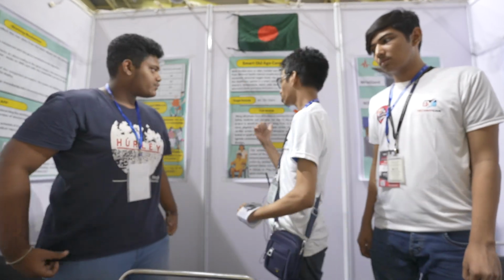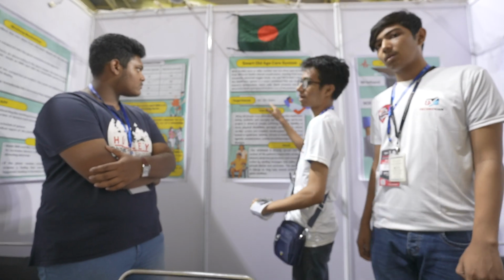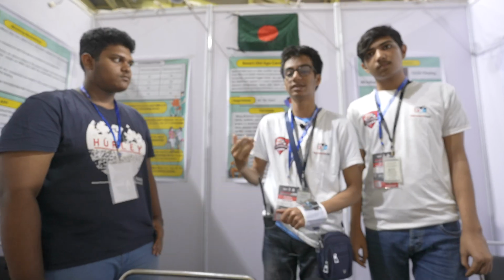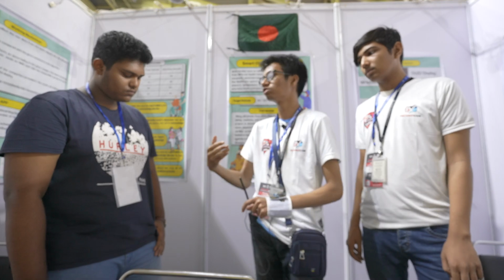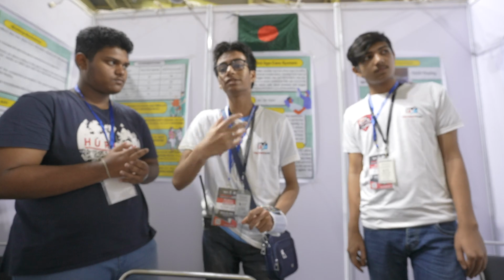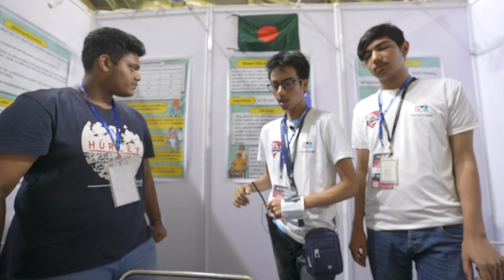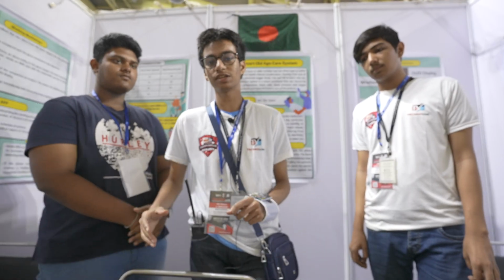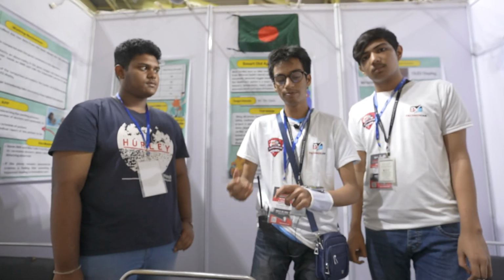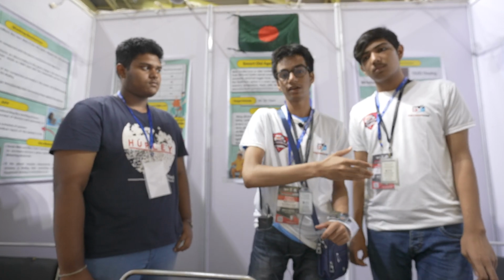Our project is basically targeted towards patients in the range of 60 to 70 plus years, and also people who are suffering from health-related complications. For example, those suffering from paralysis, the inability to move, or who are handicapped or crippled, and people who have certain health complications such as heart attack, cardiac arrest, etc. Our project measures parameters such as the temperature, the BPM, and the pH of the sweat of the patients to alert the caretakers on hand.